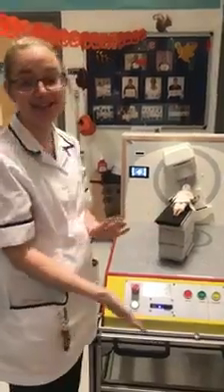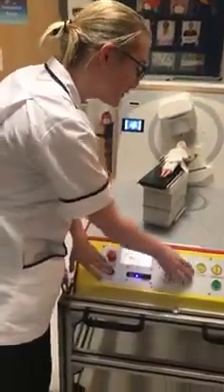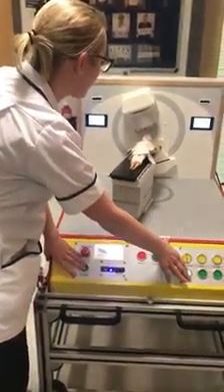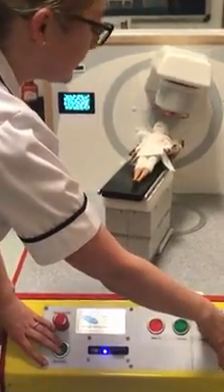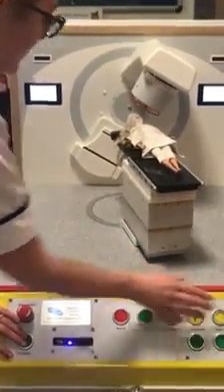What we can do is reproduce the patient's setup in Barbie mode. We just need to push on the enable button and then we can move the bed into position, move the gantry around, move the floor around a bit, and then give Barbie some treatment.